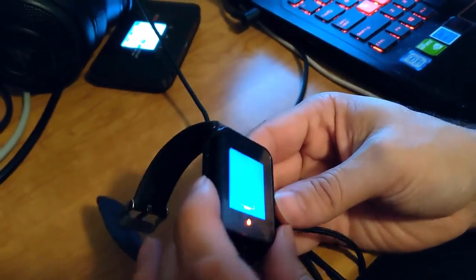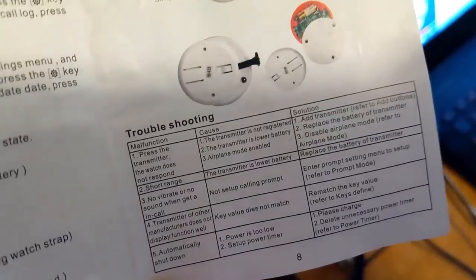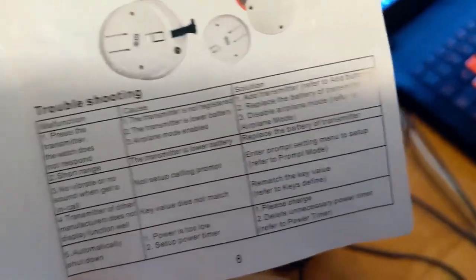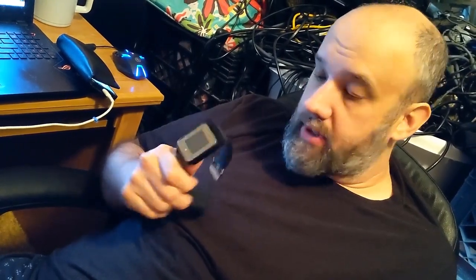We've had issues with charging the watch recently. It'll look like it's charging however it's not actually holding a charge, and I did this overnight - it still didn't work. I kept the box that this caregiver pager came in. Under the troubleshooting area it does talk about what happens when the power is too low but does not talk about changing out the battery in the watch. This emergency button - we never actually went back to try to put new batteries in. The design is very hard to get to and very hard to replace these batteries.